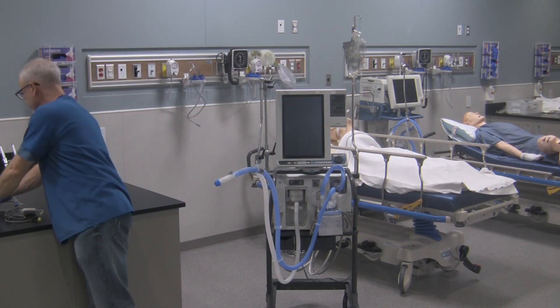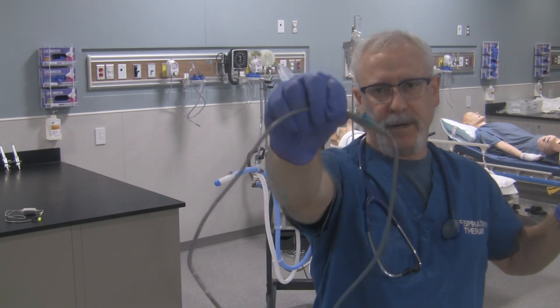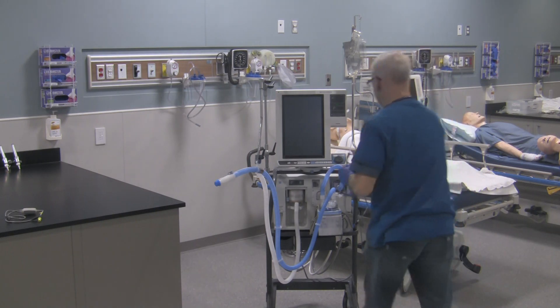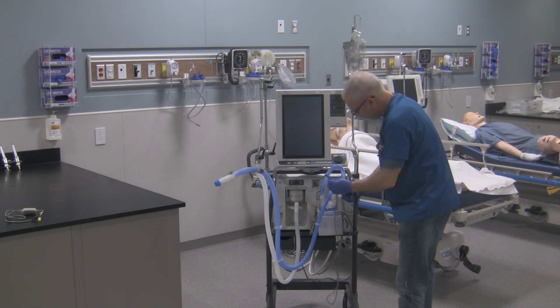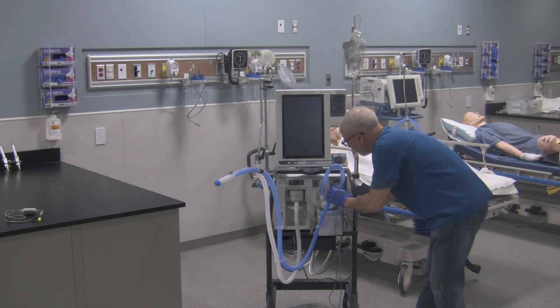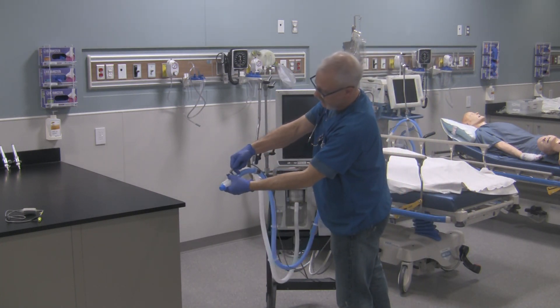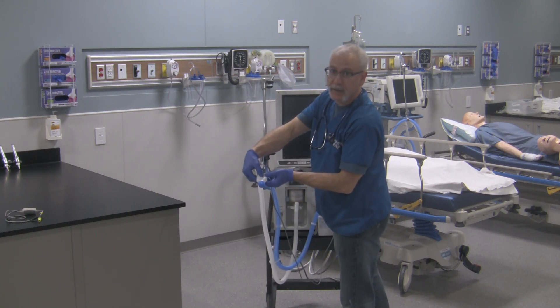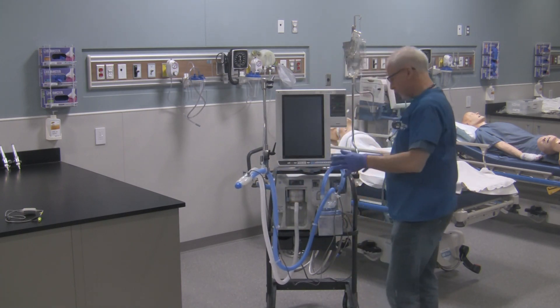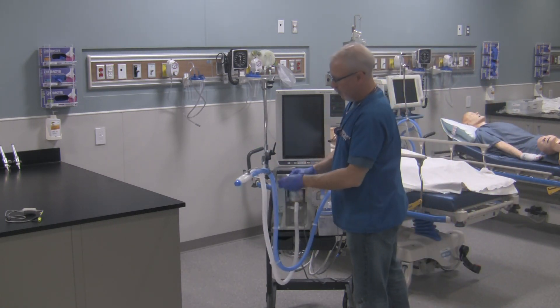Now what I have to do is put on my wires that make the humidifier work with the ventilation and humidification system. I'm going to grab the temperature sensors first — remember two ends: patient end and humidifier end. I'm going to attach the humidifier end first. Pop that tab off the port on the circuit by the humidifier, keep control of your ends, line up that probe and attach it until it goes in place. Then take the end that goes by the patient, find the port by the patient Y and cap, and cleanly connect that temperature sensor probe in there. Good idea to check the MDI port now — make sure that's on there nice and secure. Then clip the wire to the circuit using the clips that came with the circuit.